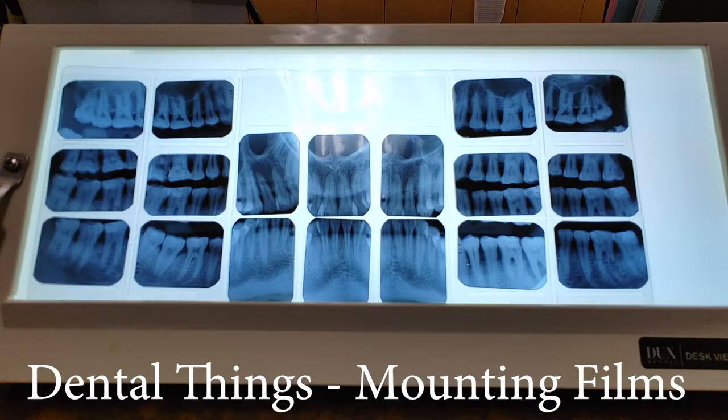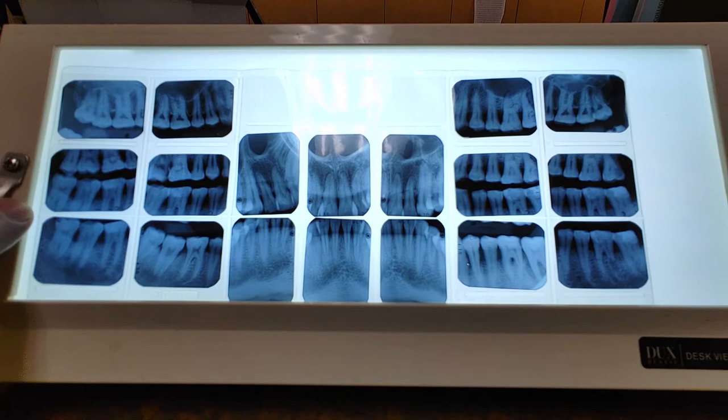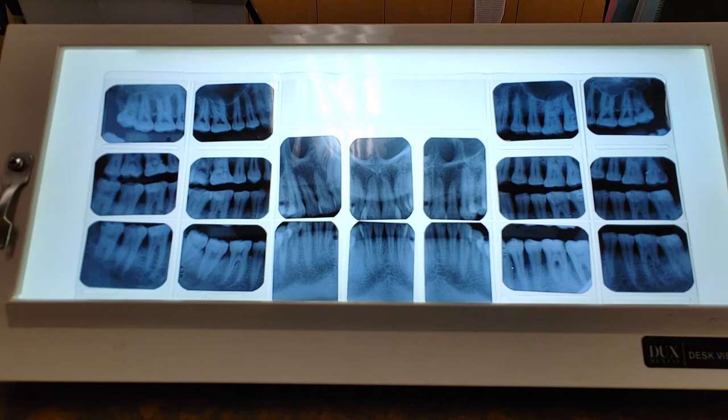Today we're going to be looking at how to mount an X-ray film using different landmarks and different areas of a mouth that we can identify from our X-rays, to get us to have a fully ordered set. Let's start with a couple of things we're going to learn.